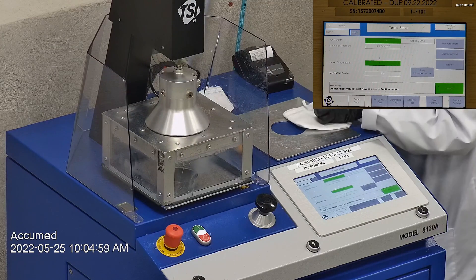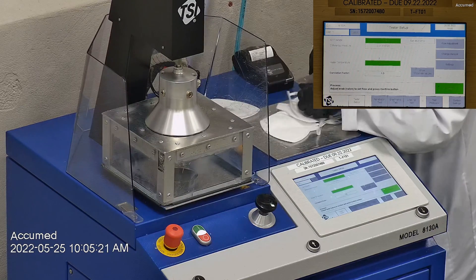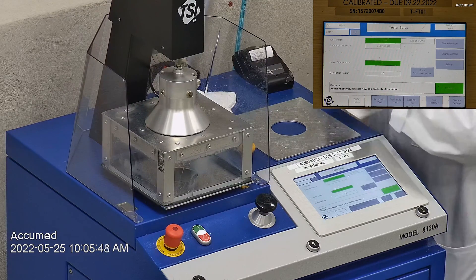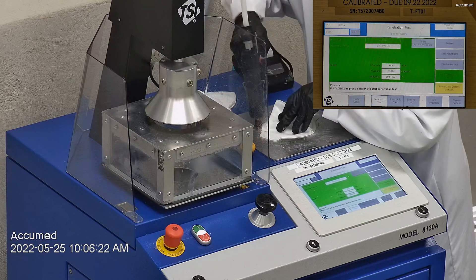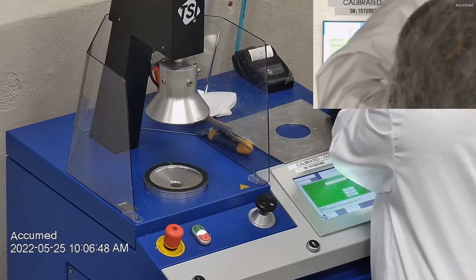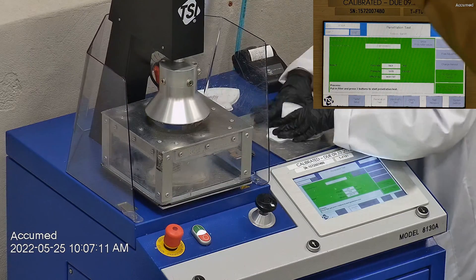Let's go ahead and see how these test on our TSI machine. We're going to be testing both the filtration and the breathability. This is our TSI machine model 8130A, which is also the same filtration testing machine that NIOSH uses to approve N95 respirators. Our procedure is inspired by NIOSH: we first run a tester setup and start removing the headband from the respirator before placing it onto the testing plate to ensure a proper seal. We then make sure the respirator is properly and completely sealed with hot glue to the testing plate, ensuring there are no holes or leakage to guarantee accurate results. The testing plate is then attached to the frame and the box is placed under the TSI filter holder for testing.